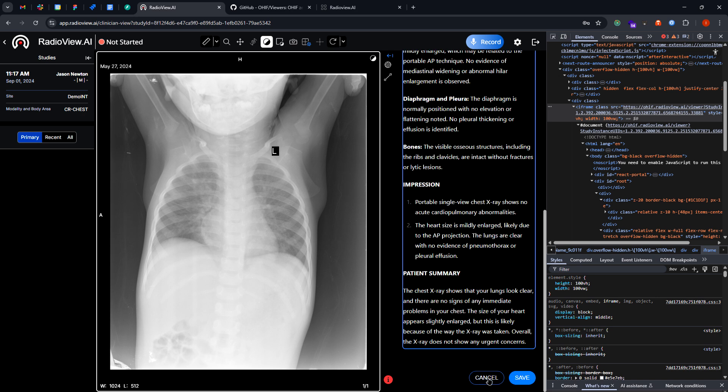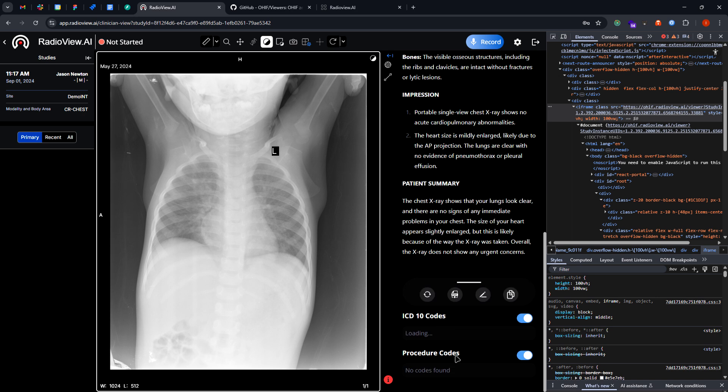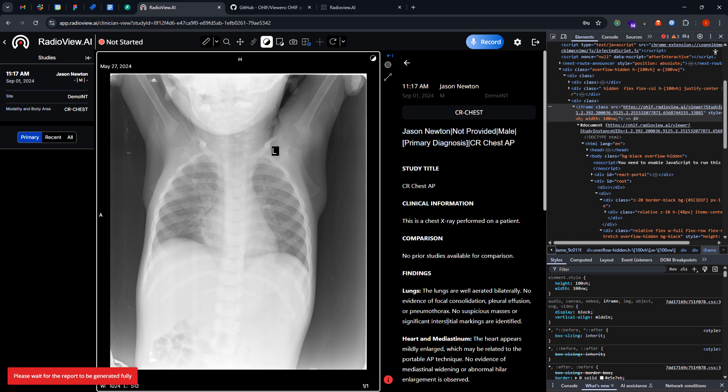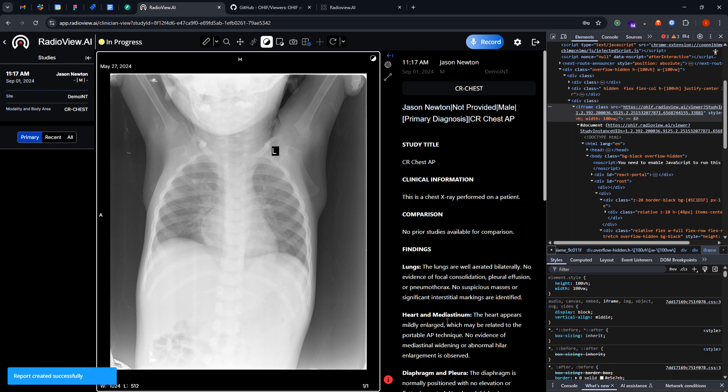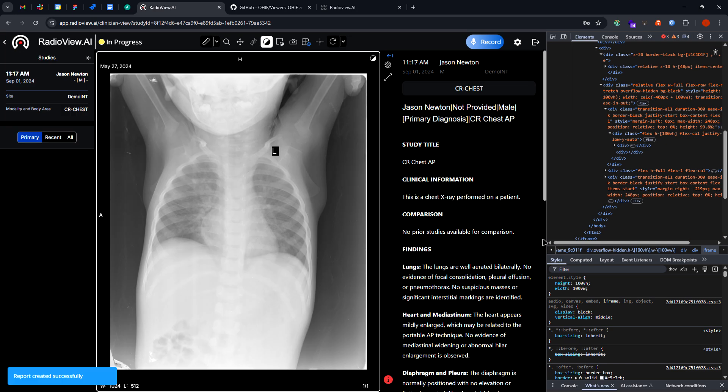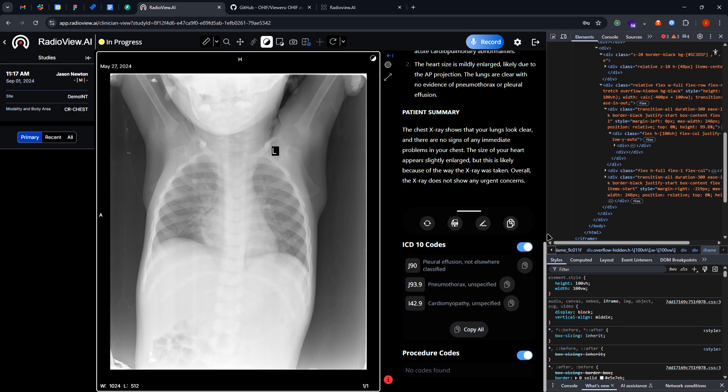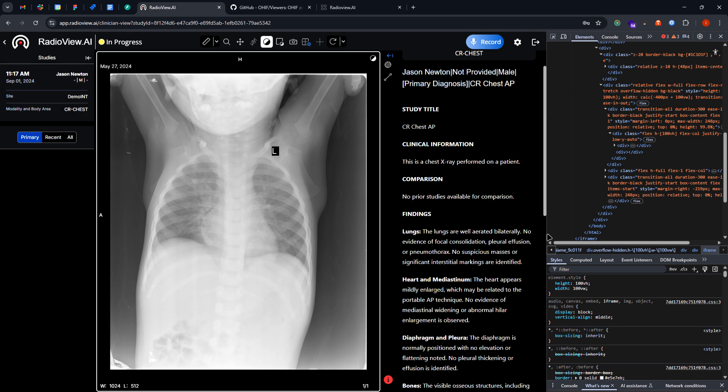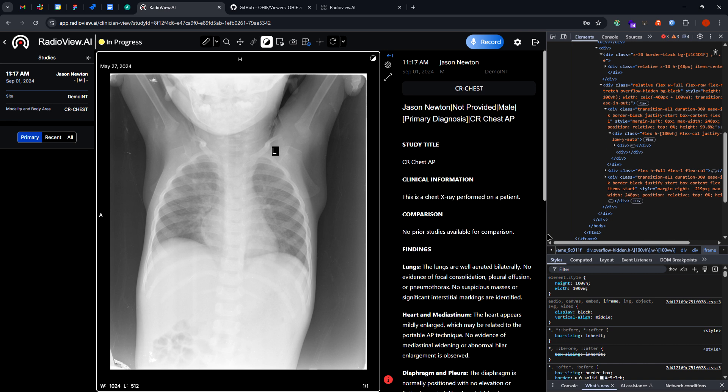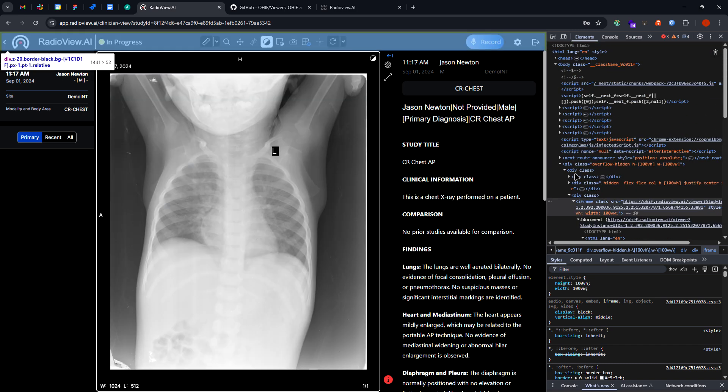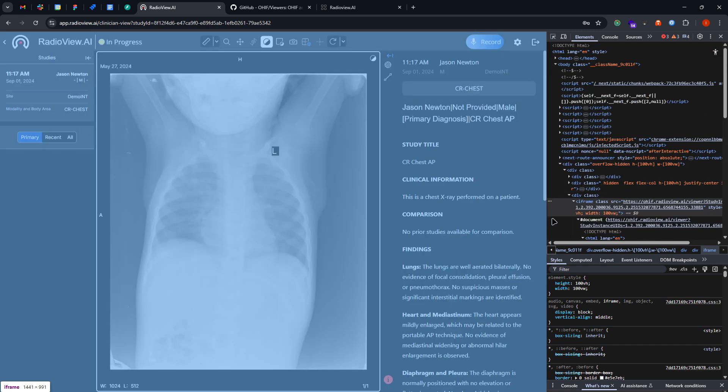You can delete, sign, these functionalities are here for our client's requirements. So yeah, basically you can use the DICOM viewer inside of other web applications as an iframe. I think this scenario perfectly suits our use case.